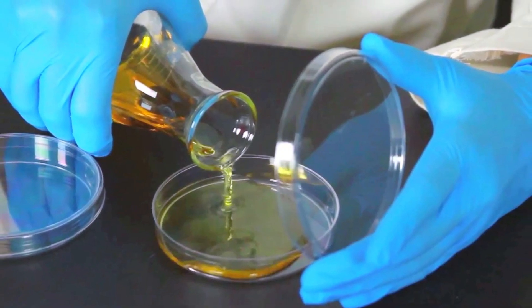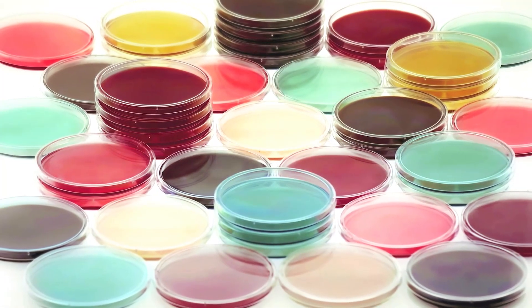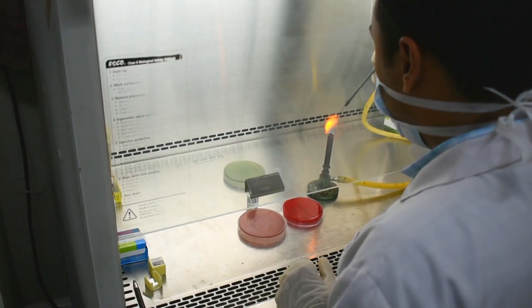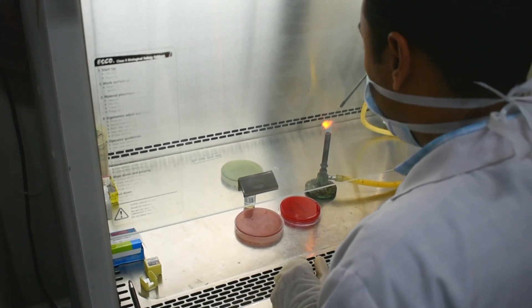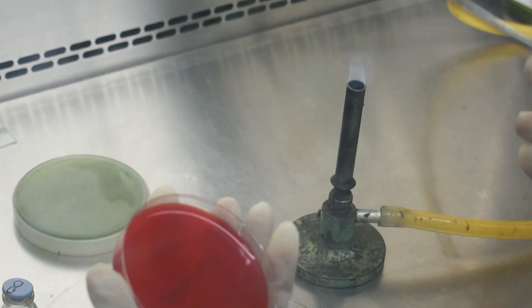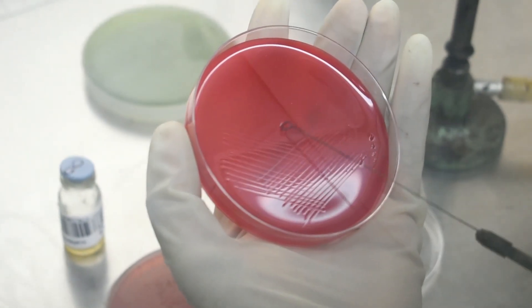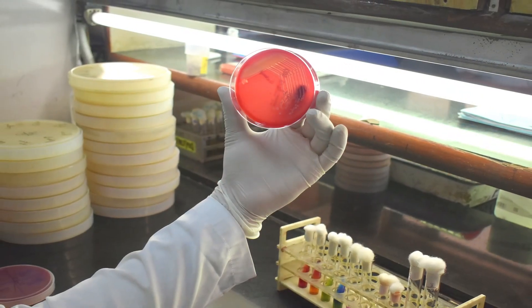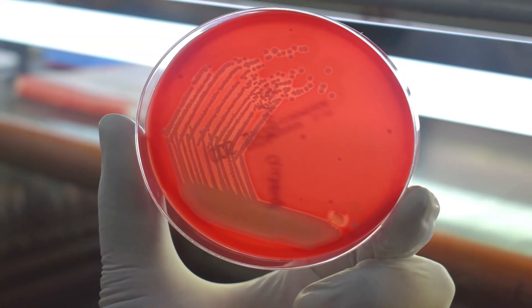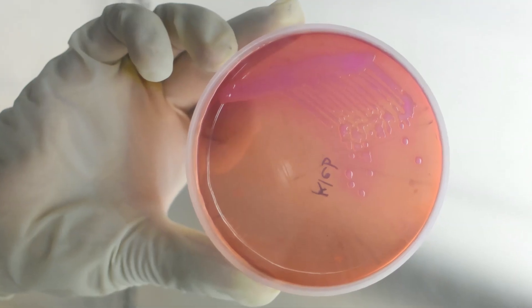Life-threatening infections with unknown causes can be ruled out by systematic laboratory protocol. For the identification of pathogens, microbiology laboratories are the first line of defense for the detection of outbreaks, food-borne infections, emerging infectious diseases, and new antibiotic drug resistance.